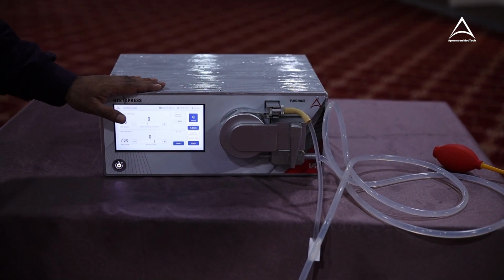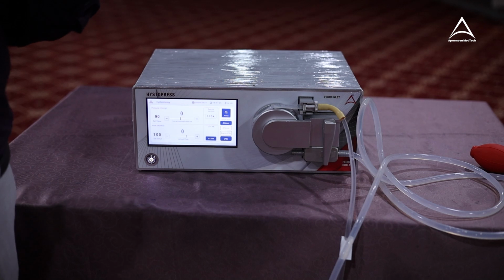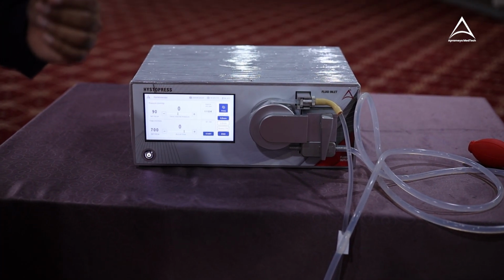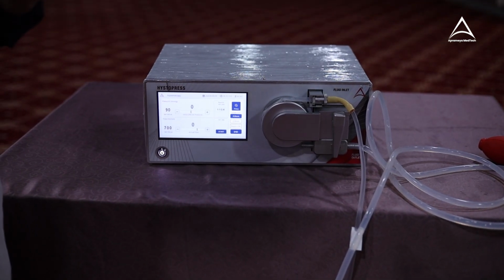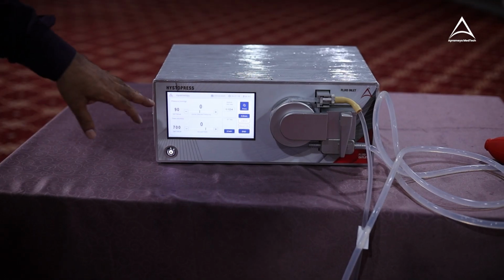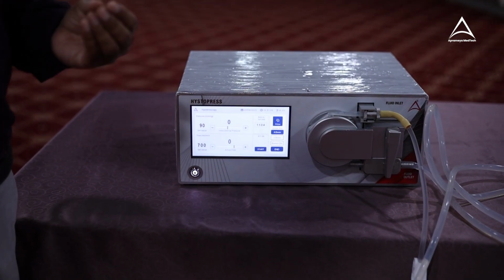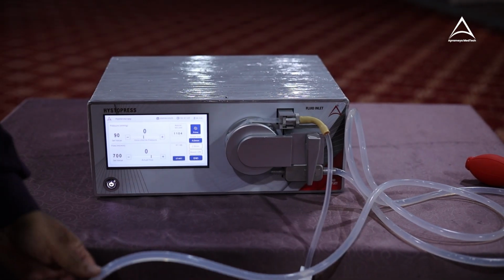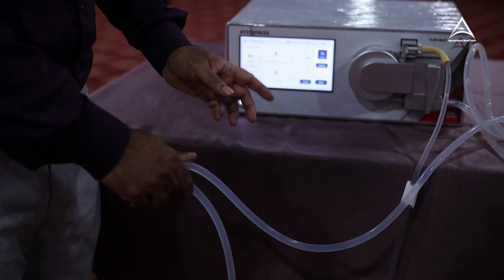Like that, there is another alarm system. Like every 20 minutes, machine will give you beep. This is to make doctor aware that 20 minutes has passed. So please be on alert. Now there is another alarm, safety alarm we can say, or error you can say, that whenever there is an accidental occlusion, anything happened to the tube, anything obstructed, the machine will give you alarm.